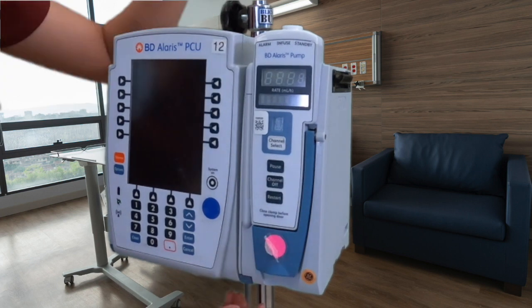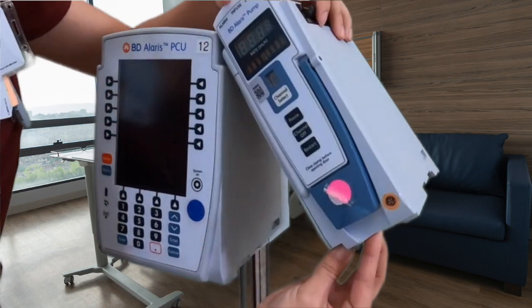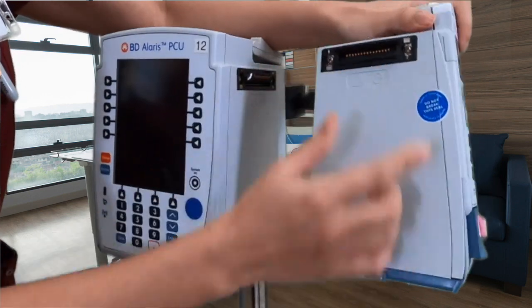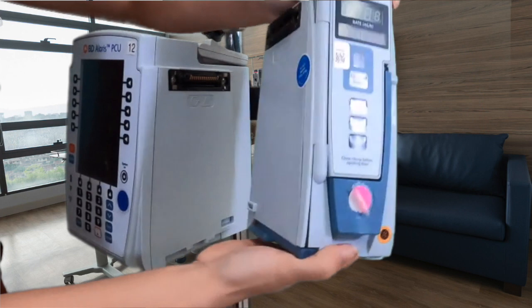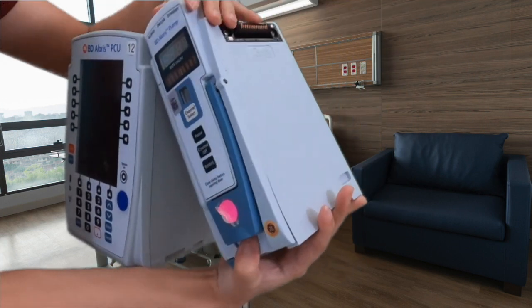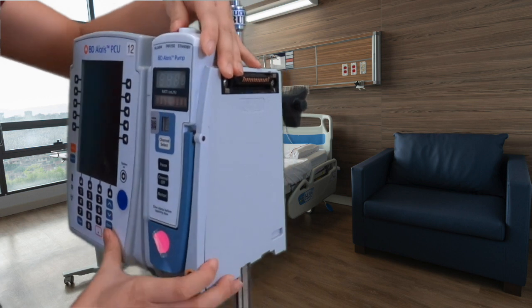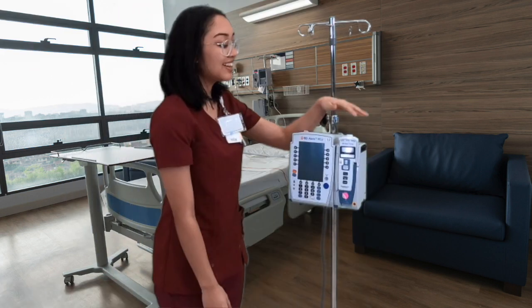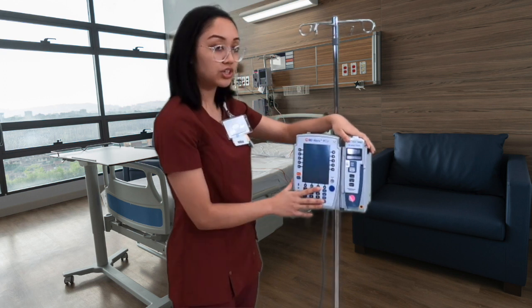If you want to release a channel, you just have to press this blue button down here and then lift up and out. There is the bar, and this is the connector. To put it back on, you just place it on top and then push down and it should click.